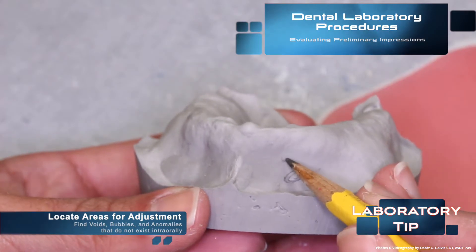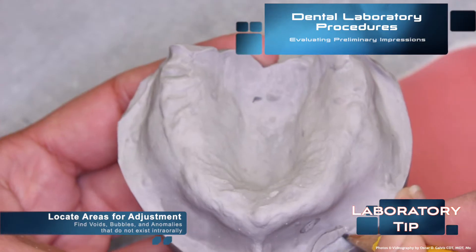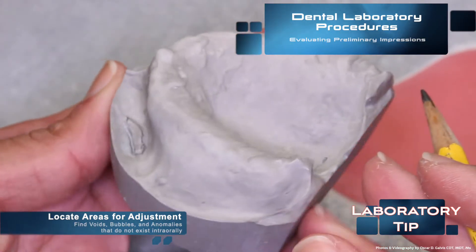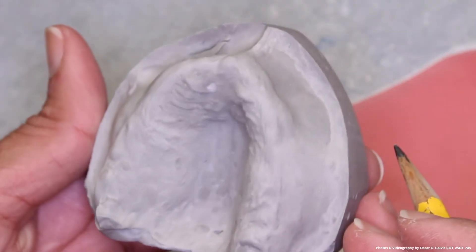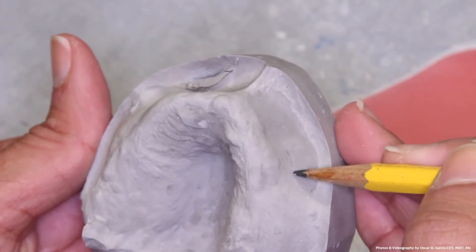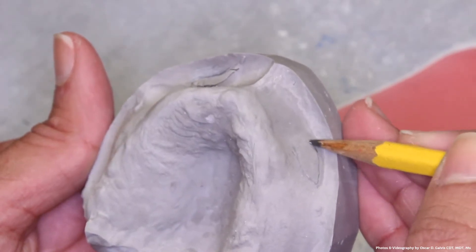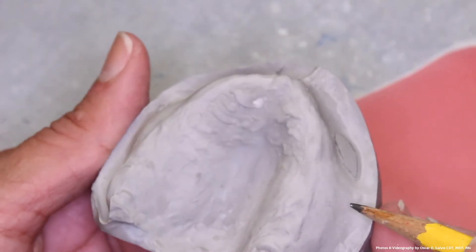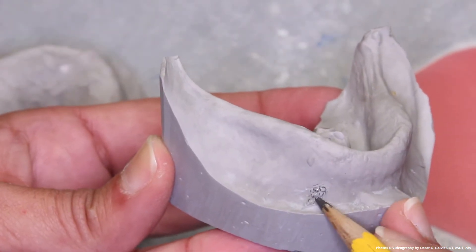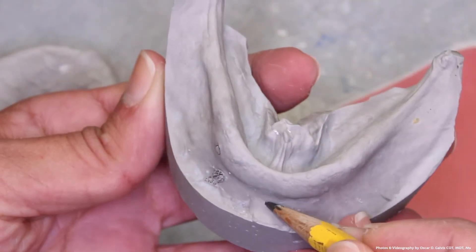To begin, we must evaluate the preliminary impressions and the models poured from the preliminary impressions. Locate any areas for adjustments. Find any voids, bubbles, and anomalies that do not exist intra-orally. These should be adjusted. If any borders are short in the preliminary cast, then any appliance made on this cast will be inaccurate. If we're looking to capture proper border lengths, then we need to do so by eliminating any voids that are on the preliminary casts.